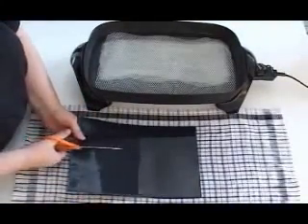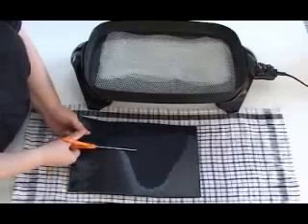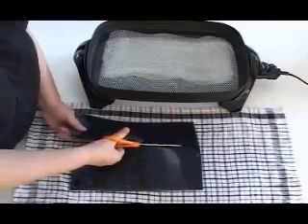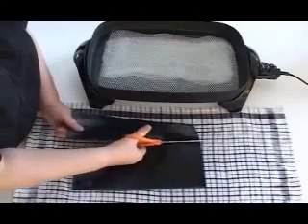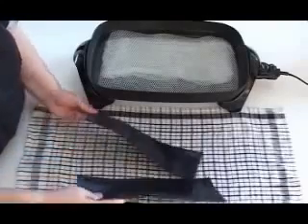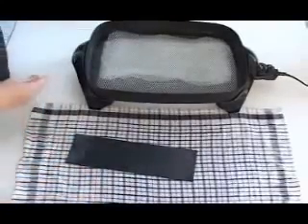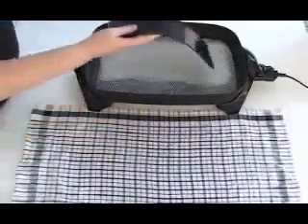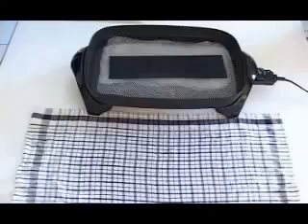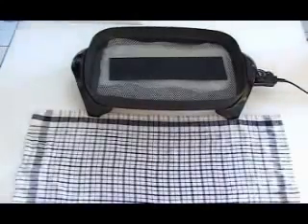Make sure that you don't fold the material since the softened material can stick to itself. When the material is soft, use scissors to cut out the rough pattern. While cutting, allow the bulk of the material to rest on the towel to prevent the material from stretching and losing its shape. If the material becomes rigid, reheat part or all of the material in the water, as needed, to re-soften it.